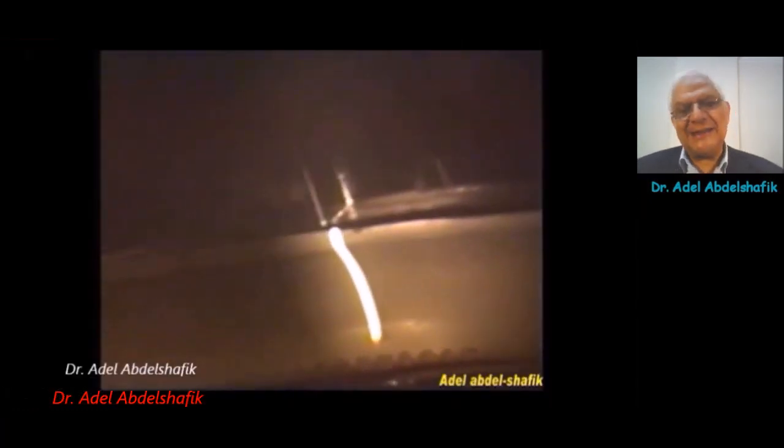I put the model on a slit lamp. You can see in the upper part a section of the cornea with inner and outer surface, while in the lower part only the inner surface — this is the trabecular meshwork, it's opaque. And this is the location of Schwalbe's line. This is the starting point.